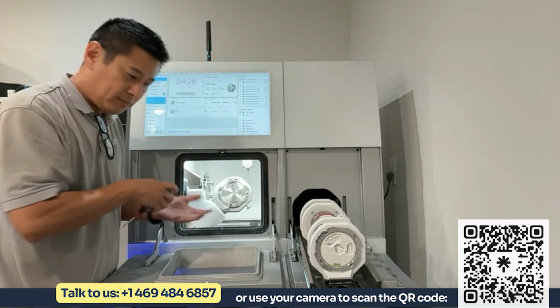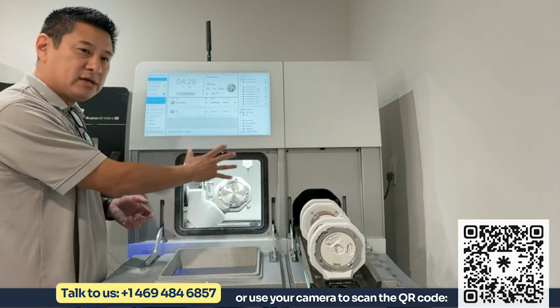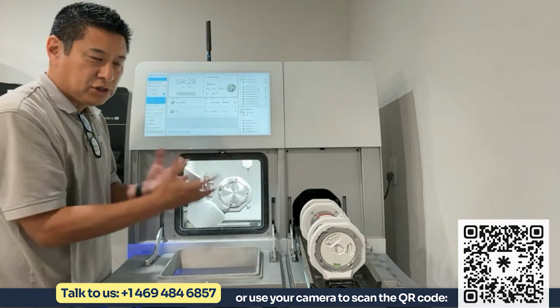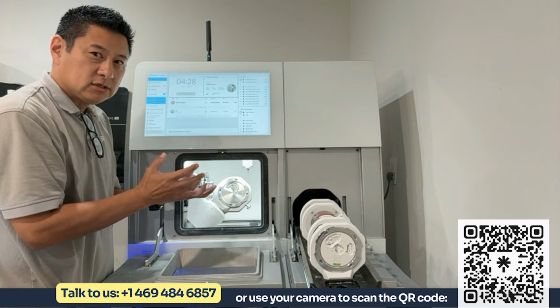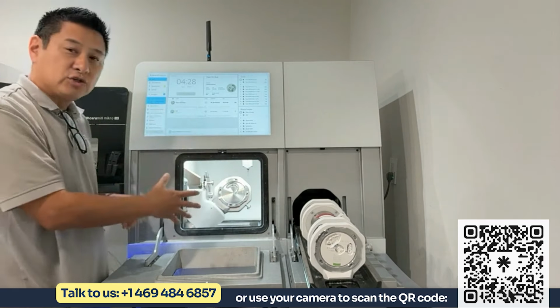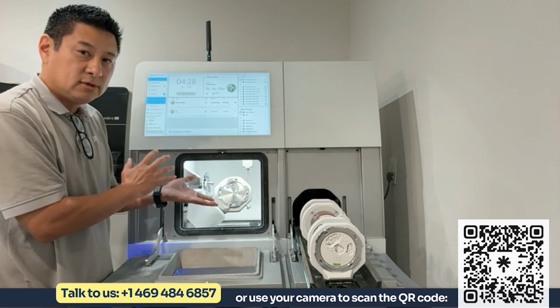you're milling metal. Now, this spindle in this mill is twice the strength of the Motion 3. So the Motion 3 is about 700 watts or 0.7 kilowatts. And this one is 1.5. Okay, so almost double.